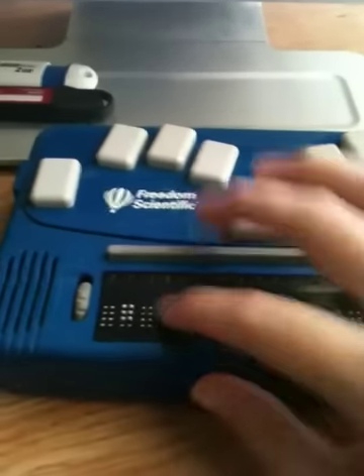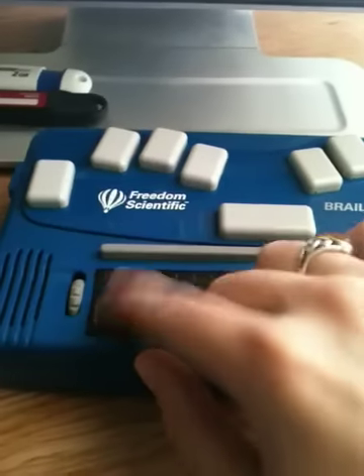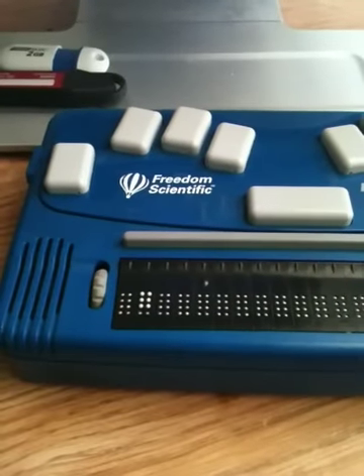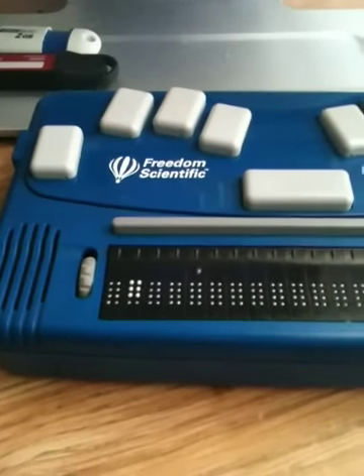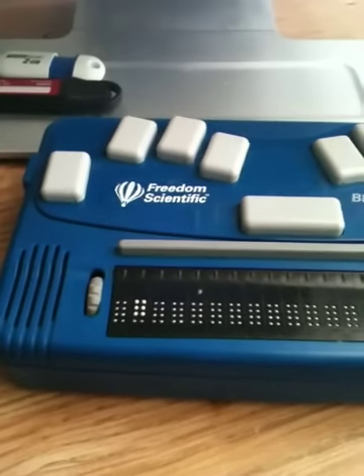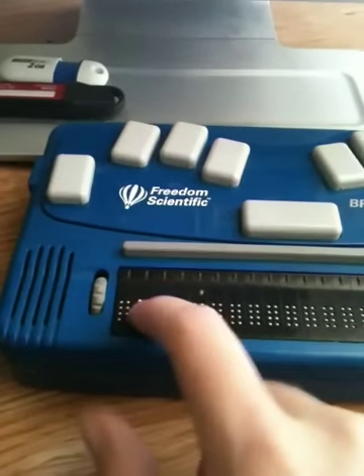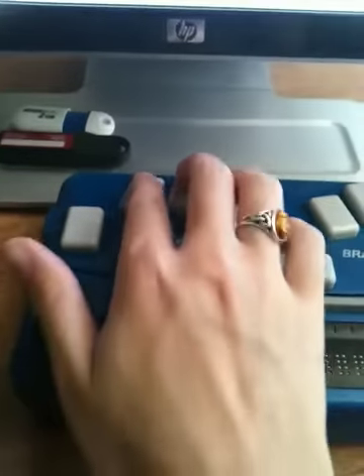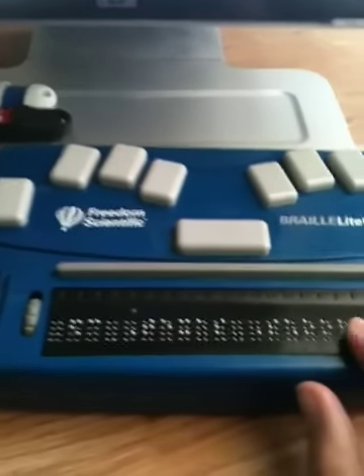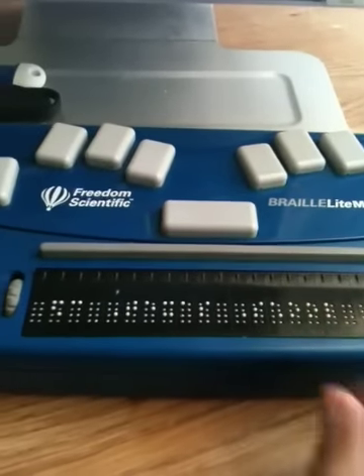So you have dot 1, 2, 3, 4, 5, and 6. This is considered a cell. If you already use that in regular reading and writing, that would be the word F-O-R. Right now this is not in a sentence, so it's just a full cell in Braille. This also talks, but the speaker cable is damaged, so it doesn't talk anymore.